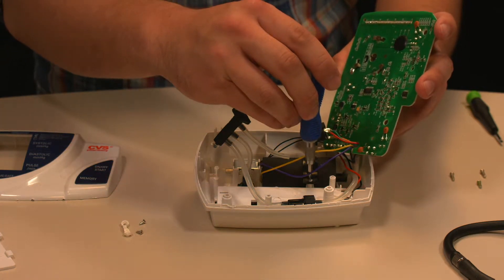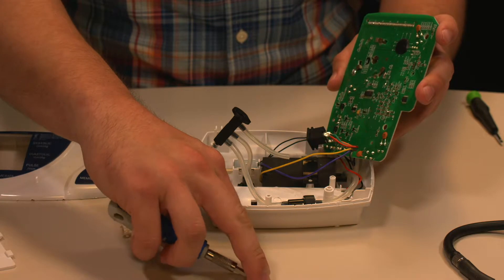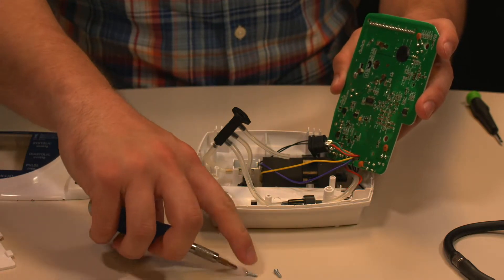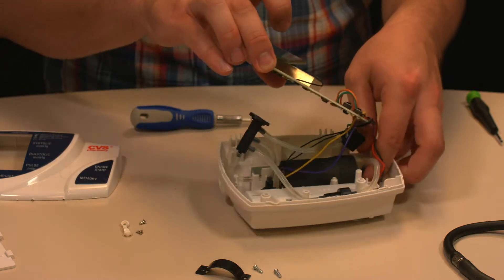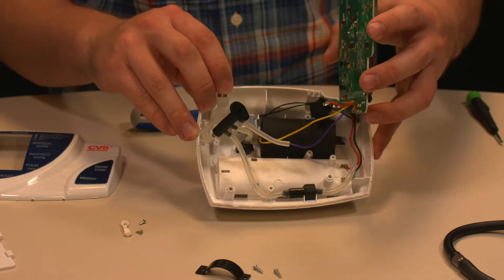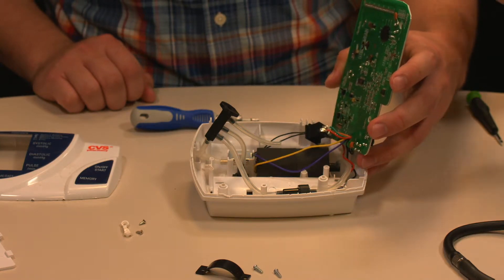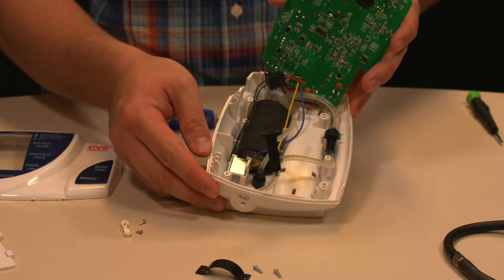You can also take out the motor — again it's two screws and a piece that contains it, and these are also different sizes so keep track of which ones are which. If you remove the motor and perform testing, such as hooking it up to a power supply to see if it performs adequately, make sure you put it back exactly where it was. Everything is tight in there, so if you don't position it as far left as it was, you won't be able to fit the adapter and wiring back in. Also note there is a connection in the front that needs to go back in place. Check that everything is soldered to the circuit board — if any solders are shorted or broken, it won't work correctly.